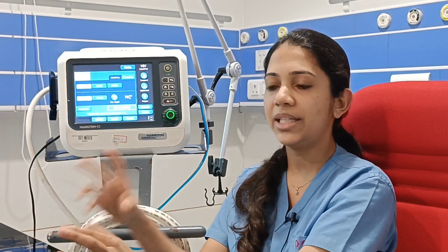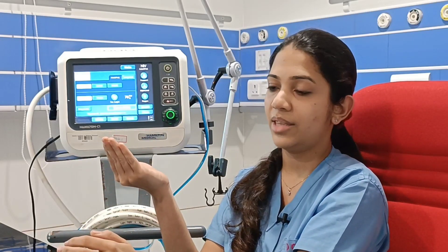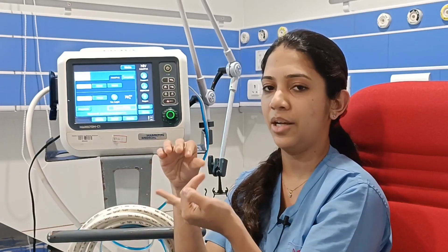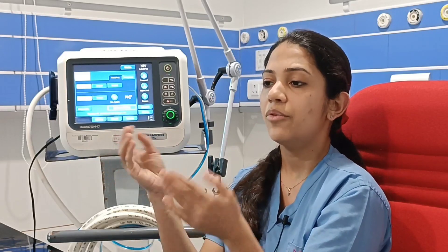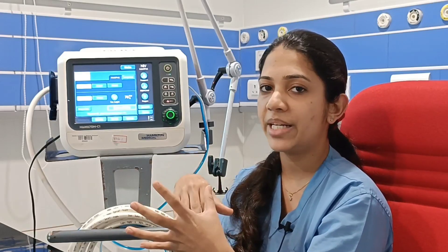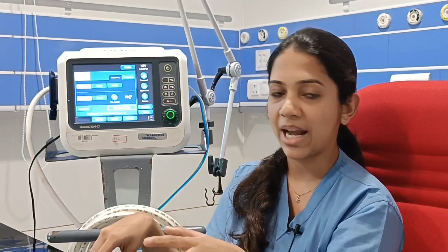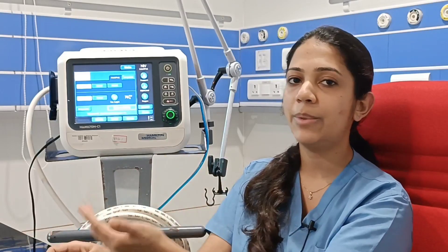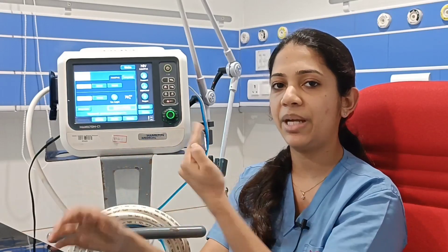Depending on the pressure and frequency we set, we can provide adequate ventilation for the patient. One important thing to remember is that in PCV mode, the ventilator is taking over the patient, so the patient should be properly sedated and paralyzed — it is not a weaning mode. Immediately after intubation we mostly go for PCV mode, and depending on weaning and patient improvement, we step down to different modes. PCV mode is ideally used in a fully sedated and paralyzed patient.